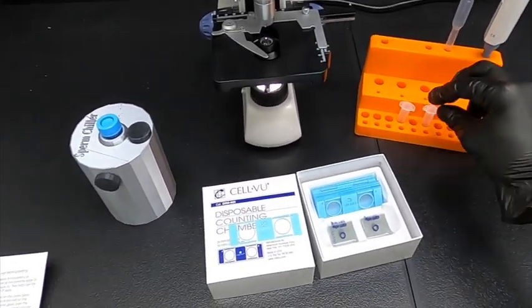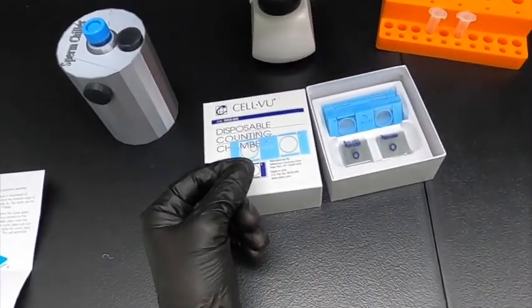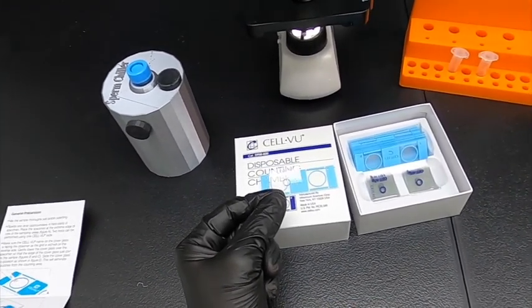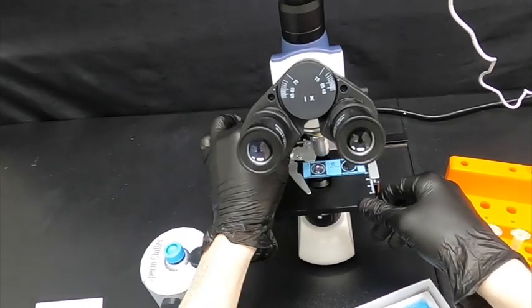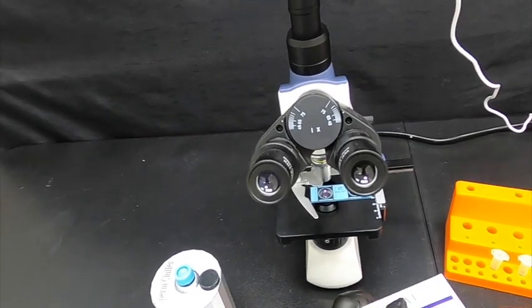Okay, so now the next step here is we're going to want to put the glass slide over the top and slide it out. So make sure the cell view name is facing up and then of course always start off with the lowest magnification on your microscope that will enable you to catch when you're in focus quicker.